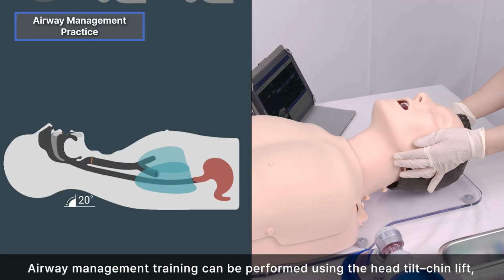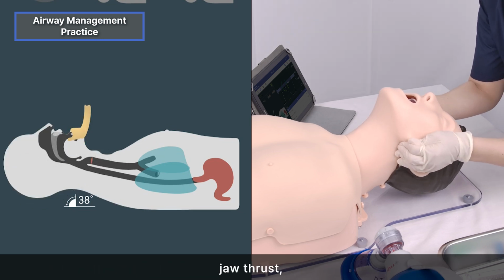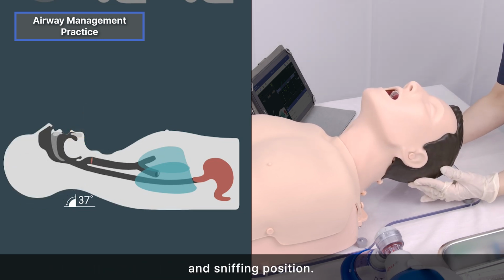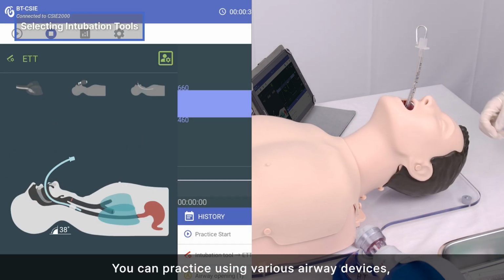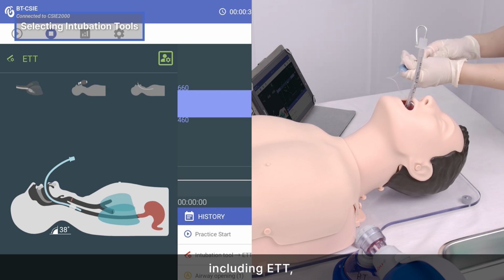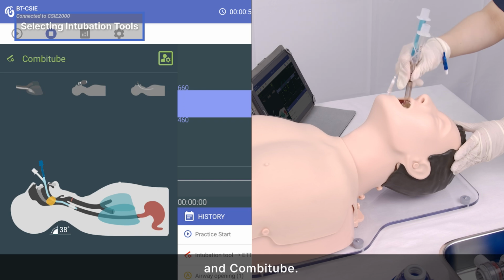Airway management training can be performed using the head tilt, chin lift, jaw thrust, and sniffing position. You can practice using various airway devices, including ETT, LMA, iGel, and Combi tube.